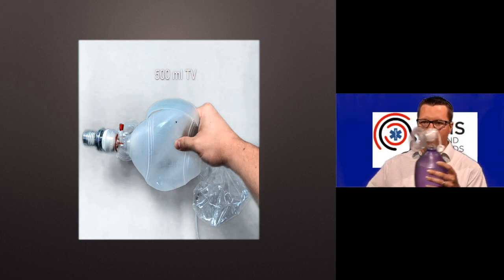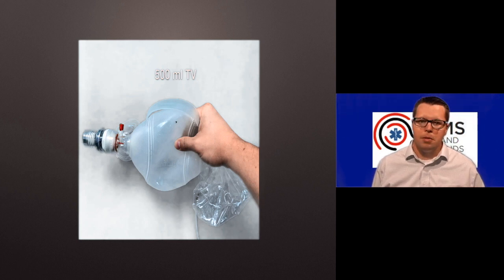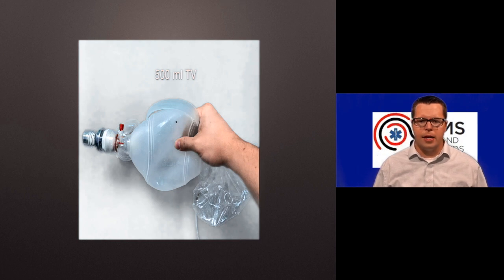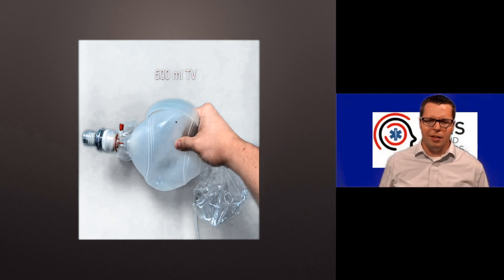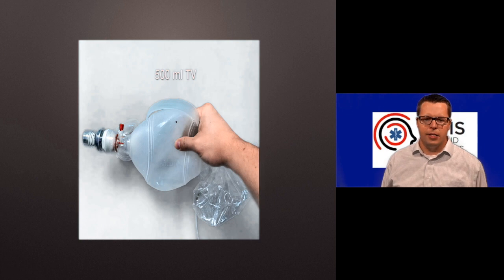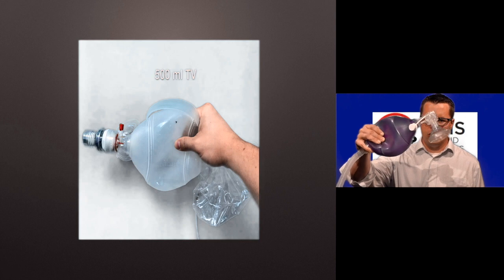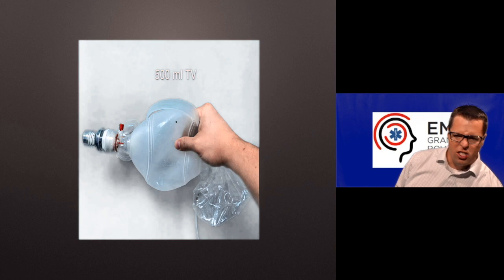The other thing you can do is you don't have to use this giant adult-sized bag each time. They do make small adult-sized bags which have a total volume of about 700 mLs, or child-sized bags usually have a volume somewhere around 600 mLs. You can just use one of those, and then you can squeeze basically the entire thing, and you still won't really give the patient too much volume over 500 or something like that. So using a smaller bag is the other option, but if you do have these large bags, you certainly should change your grip and just squeeze the back of the thing, because you don't need the whole volume of air going into the patient each time.